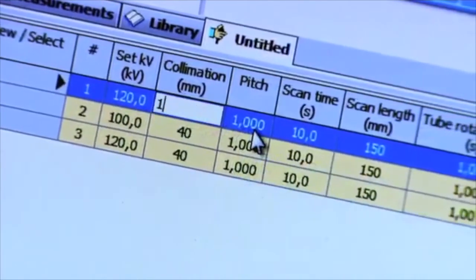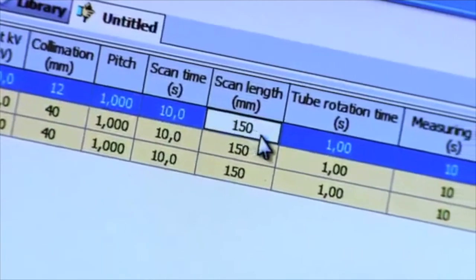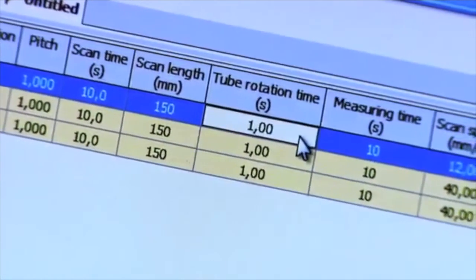Kilovolt. Collimation. Pitch. Scan length is not required for free in-air measurements. Tube rotation time.